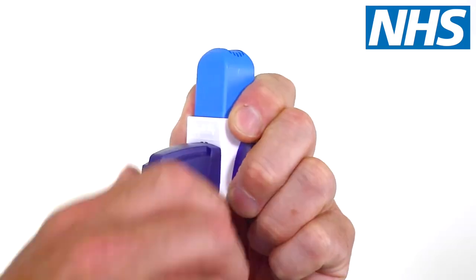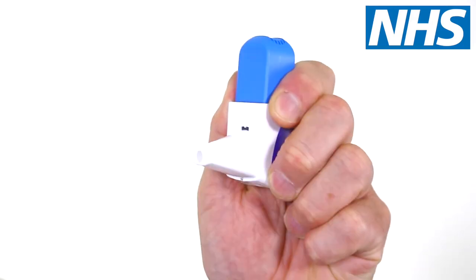You should always sit upright or stand up when using your easyhaler inhaler. Hold the inhaler upright and shake it firmly three to five times. Remove the protective cover if you use one, followed by the dust cap.